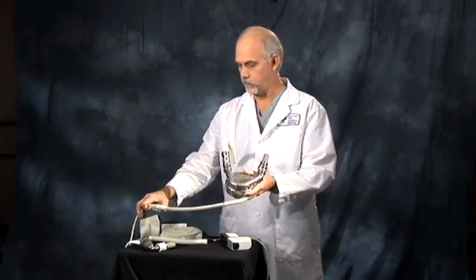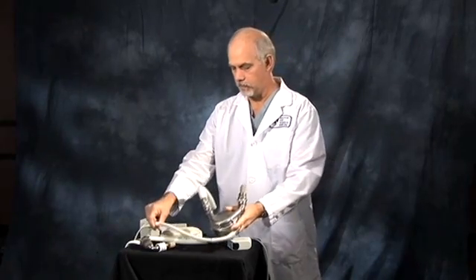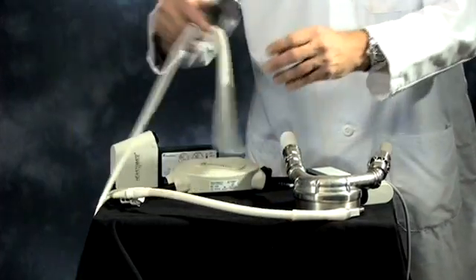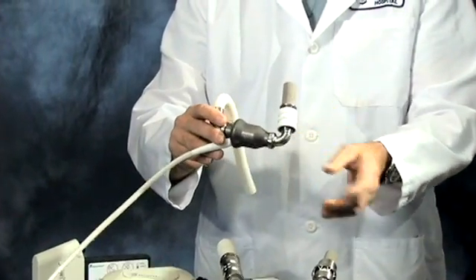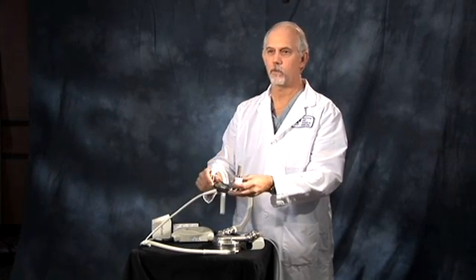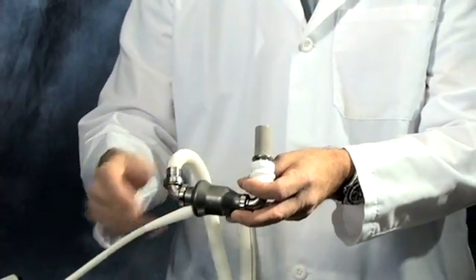But we were one of the trial centers for a different pump, which is this pump. Much smaller, you can see, and it pumps blood without pulsing the blood. And most of these patients with these kind of pumps actually walk around and have no detectable pulse, but they're leading completely normal lives.